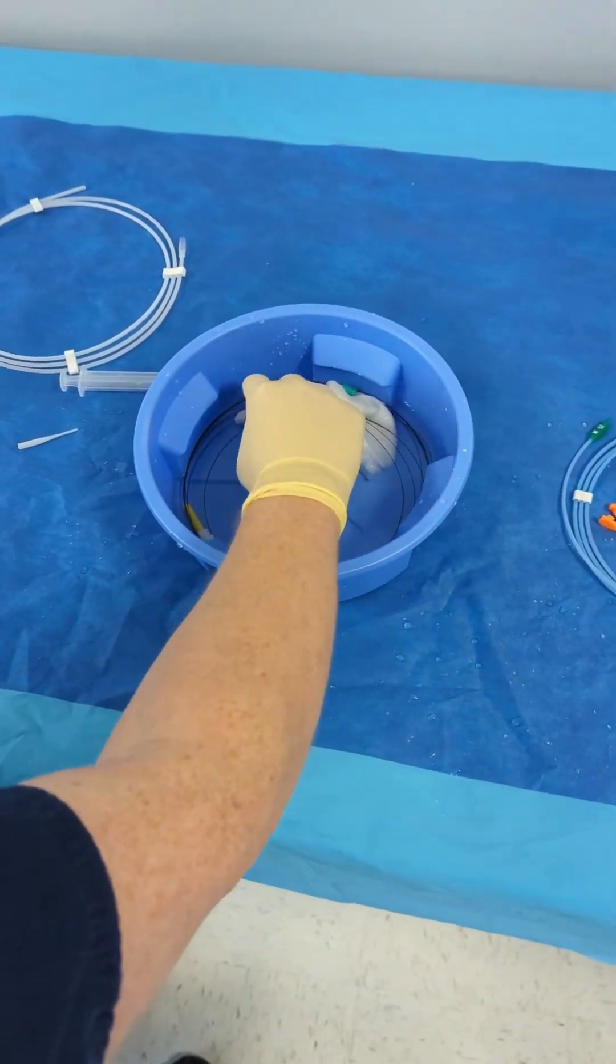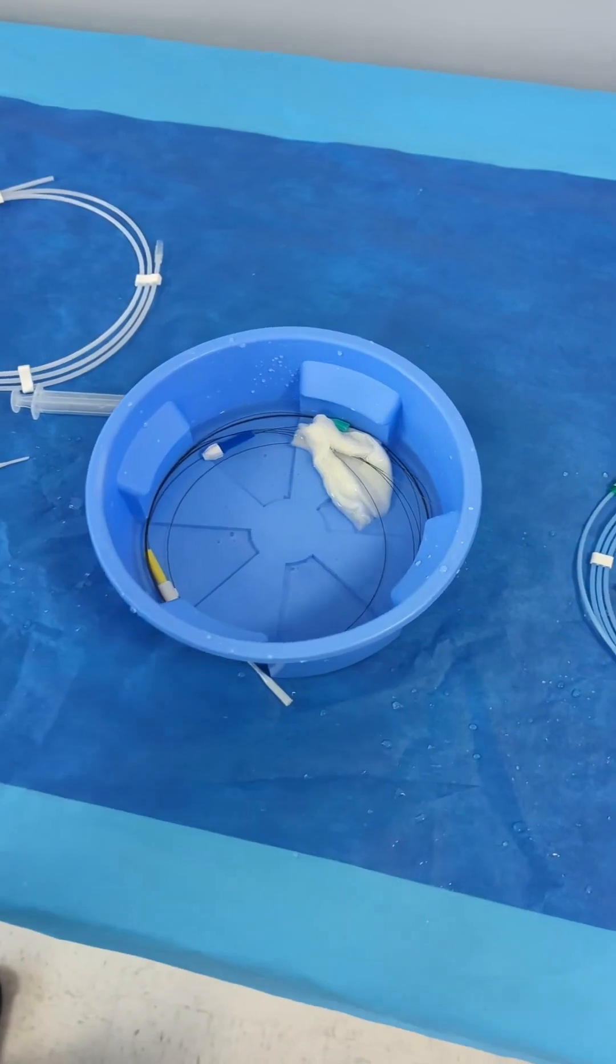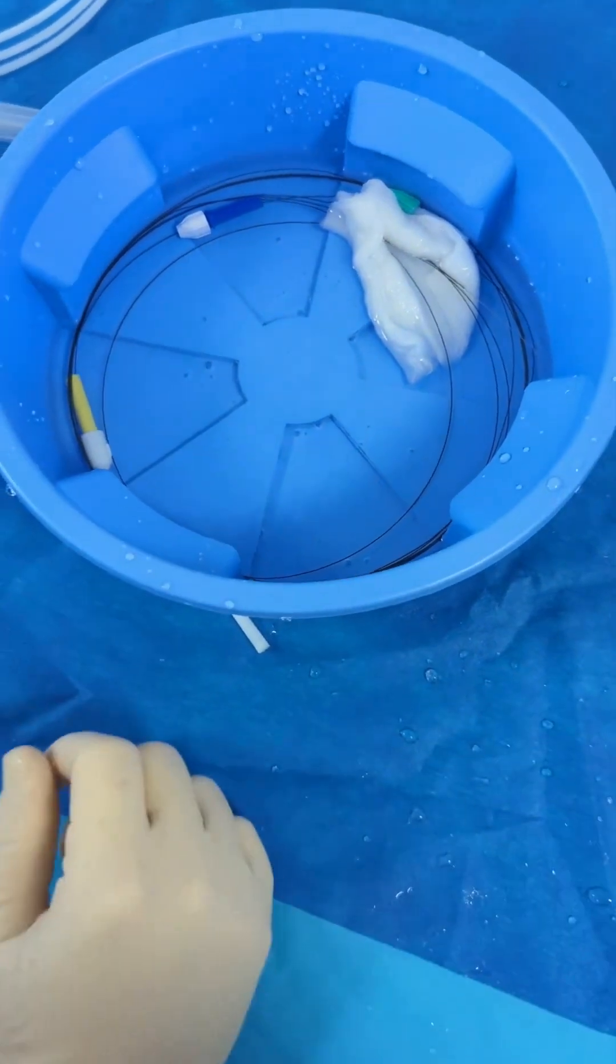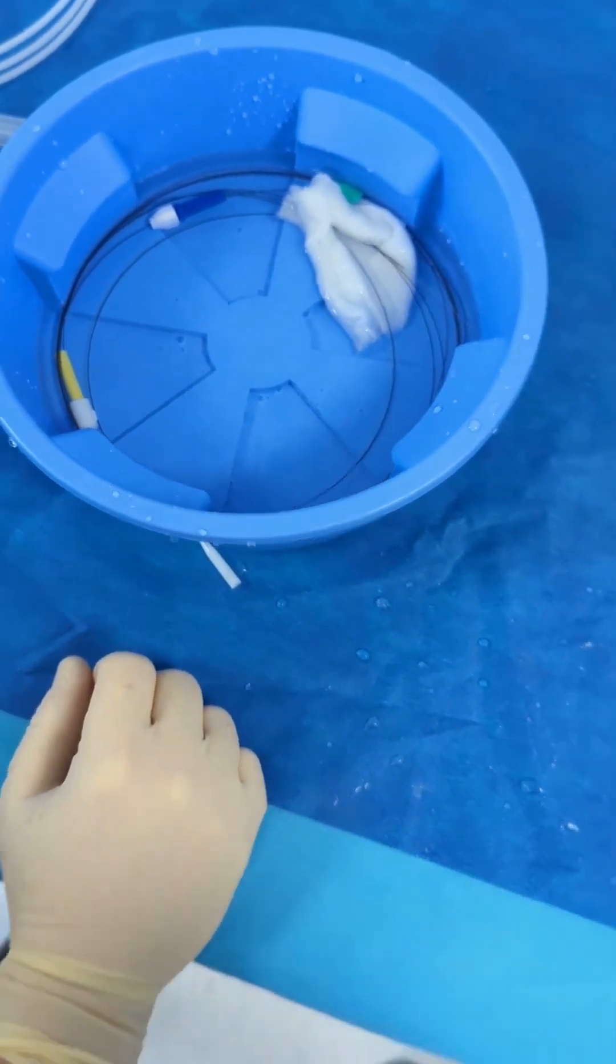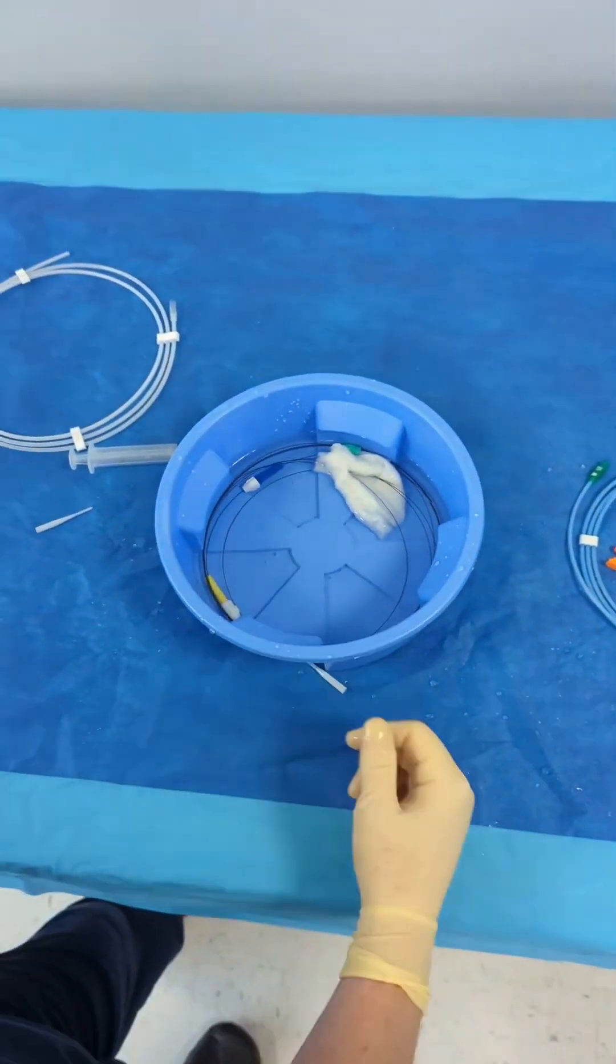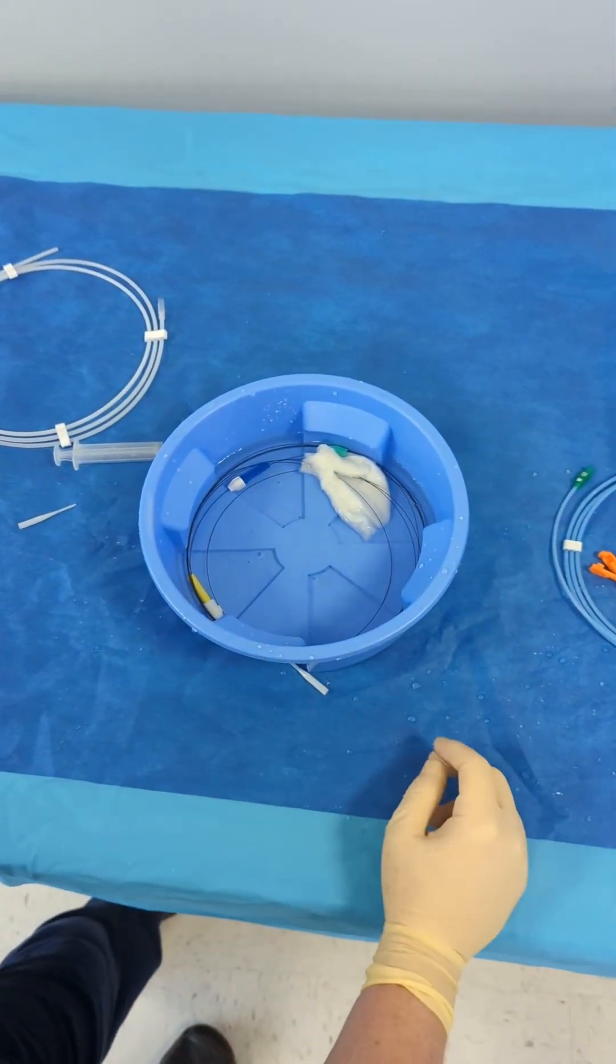So when the guy said that he re-hooped everything, the reason why I don't re-hoop my interventional wires are the torques, because these are located within the working length of what the doctor is going to use at the front of his catheter.